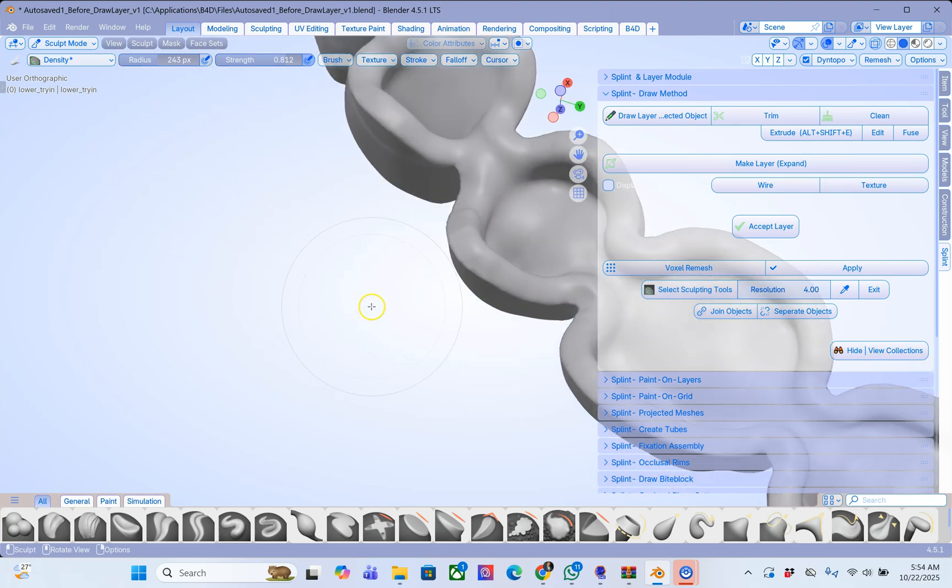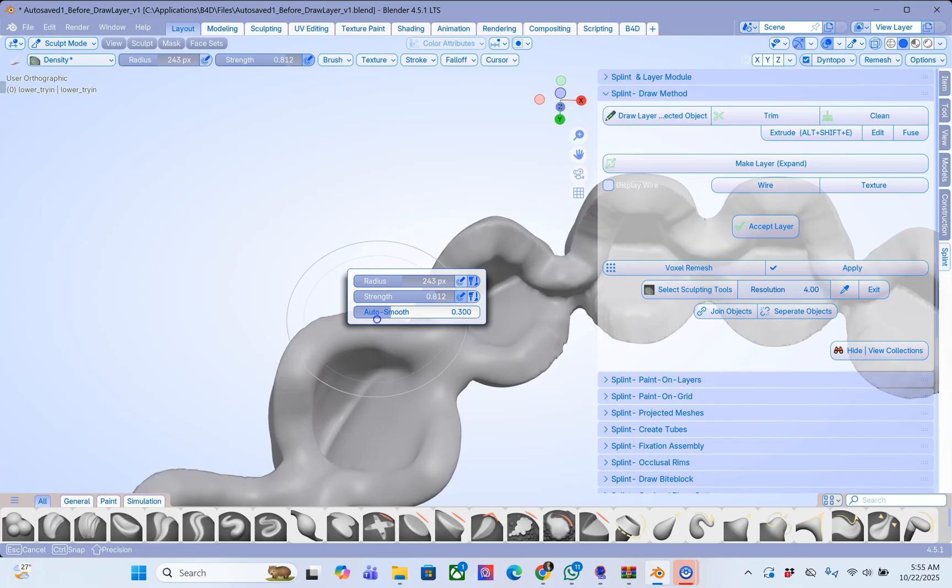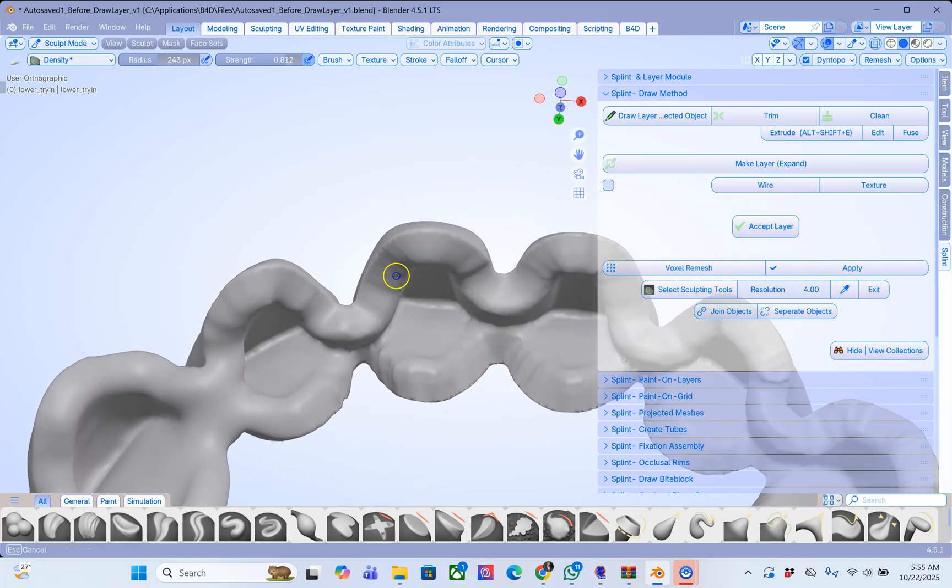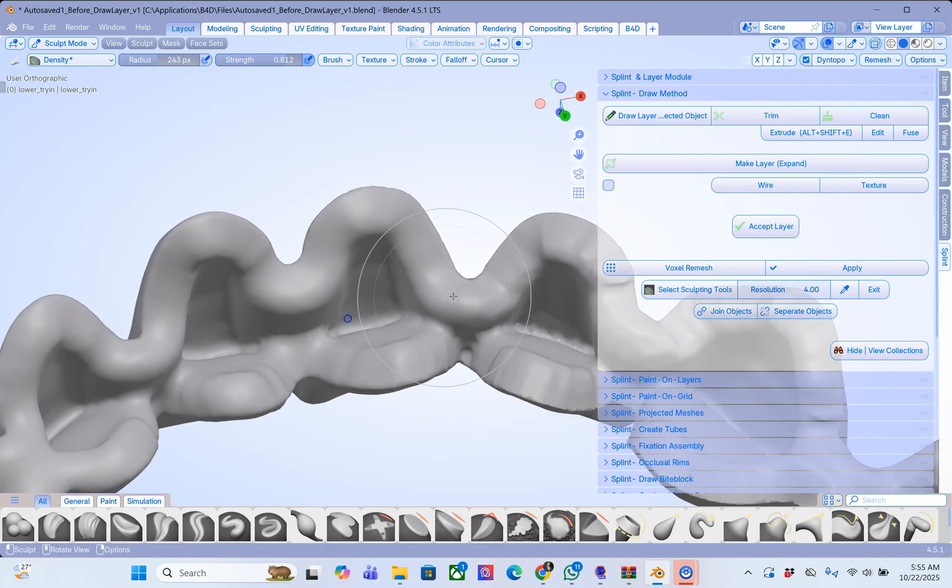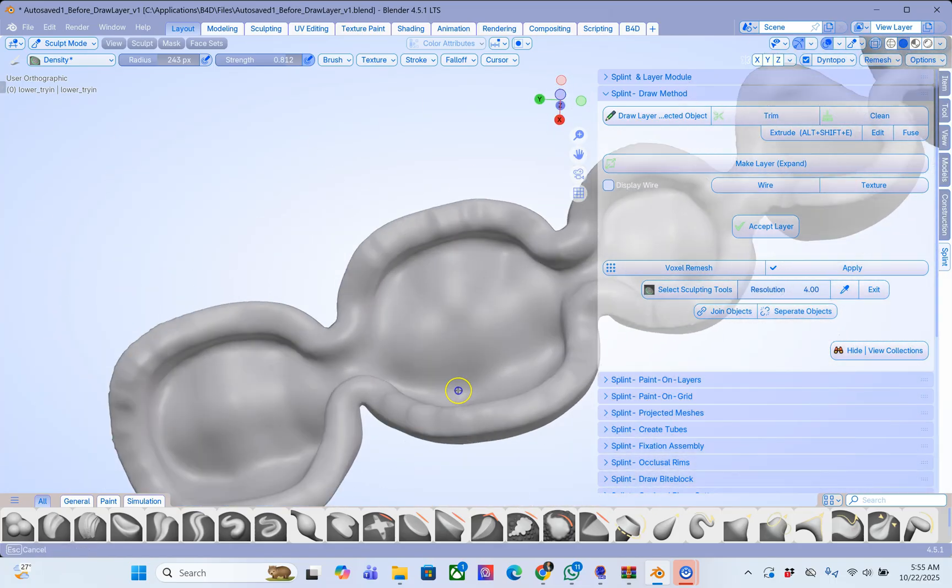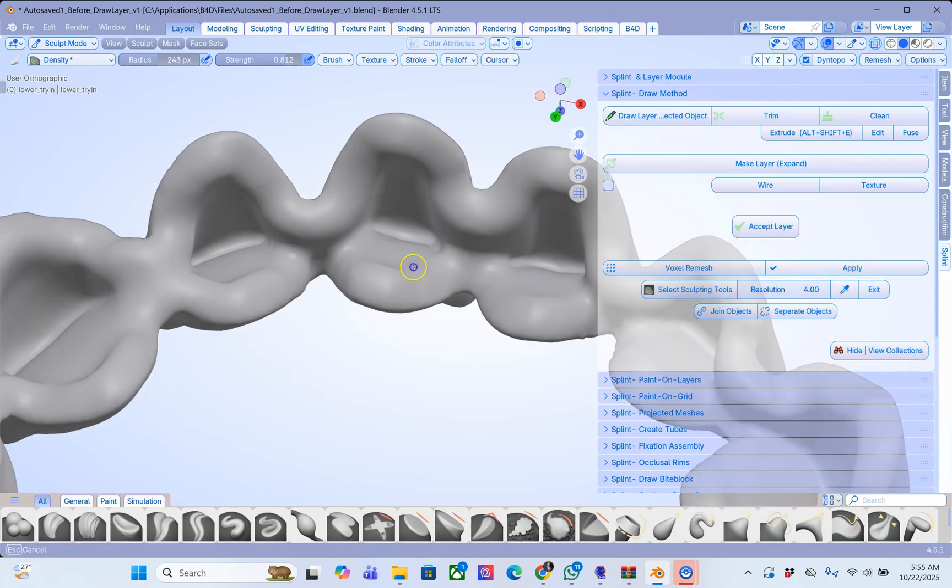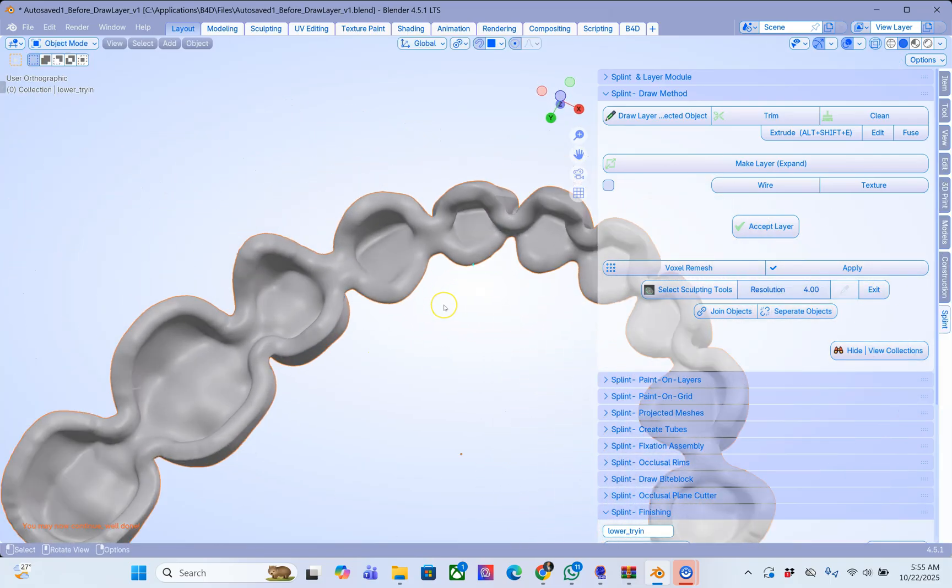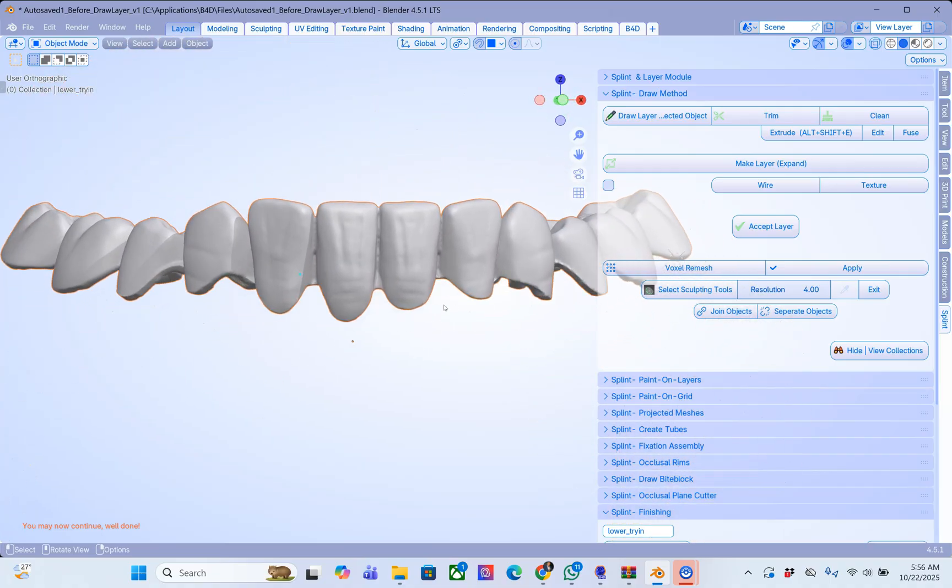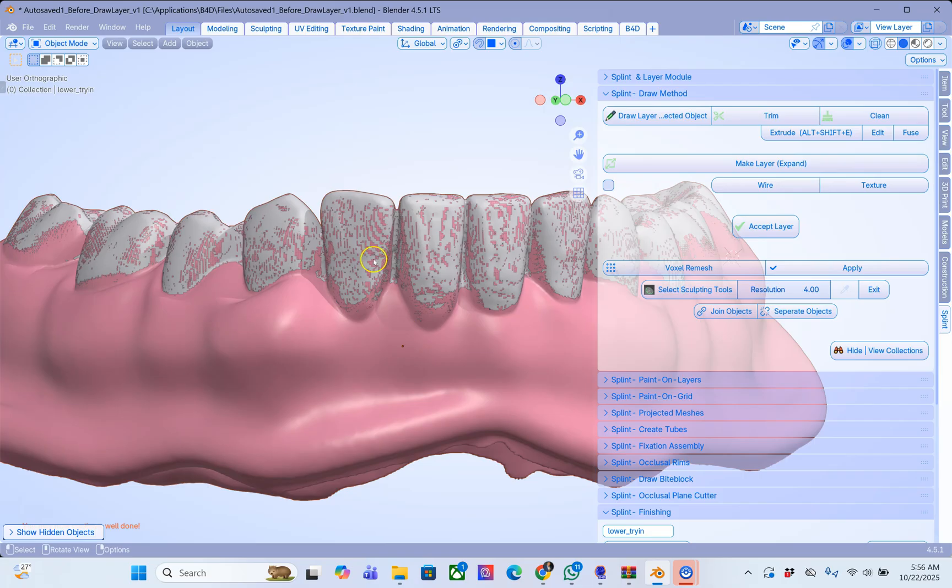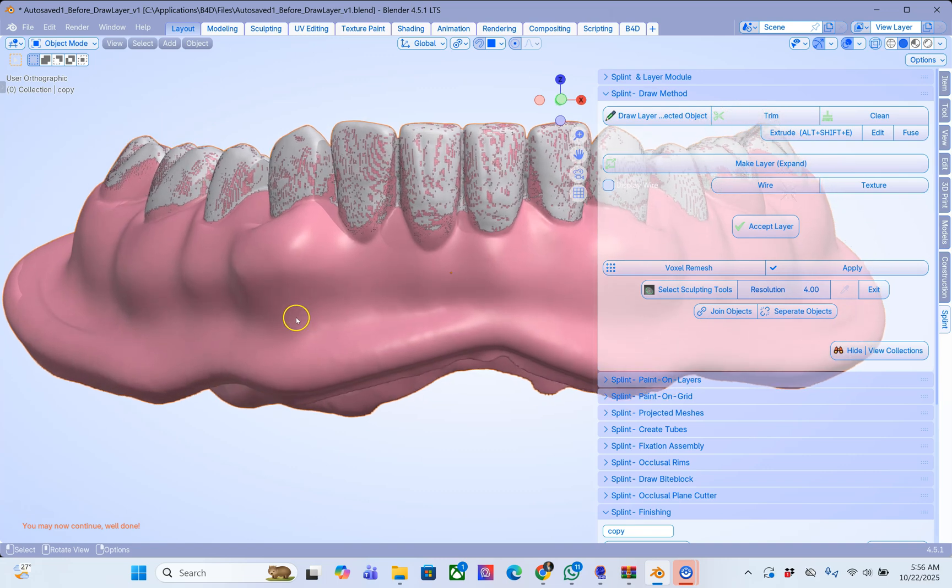So I've got it set quite aggressively. So you can set it a bit less aggressively by changing the auto smooth. Now just remember that this is going to be printed. These are going to be your teeth. Now hold edge to unhide. This is going to become our cutting tool and this is our tissue.